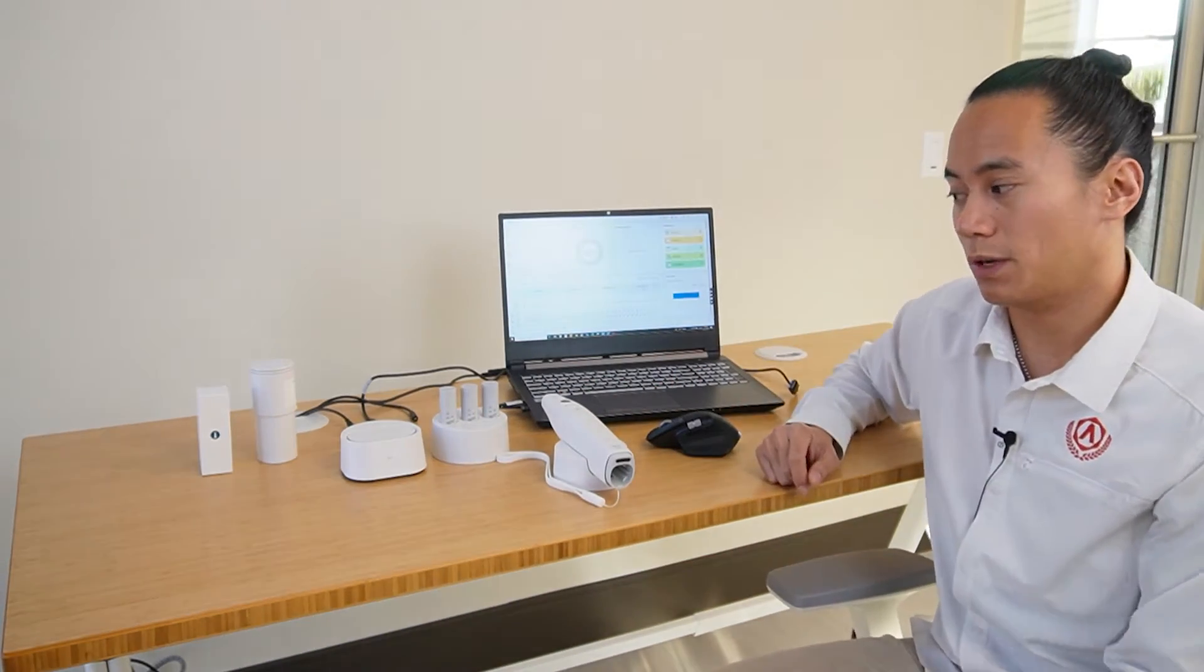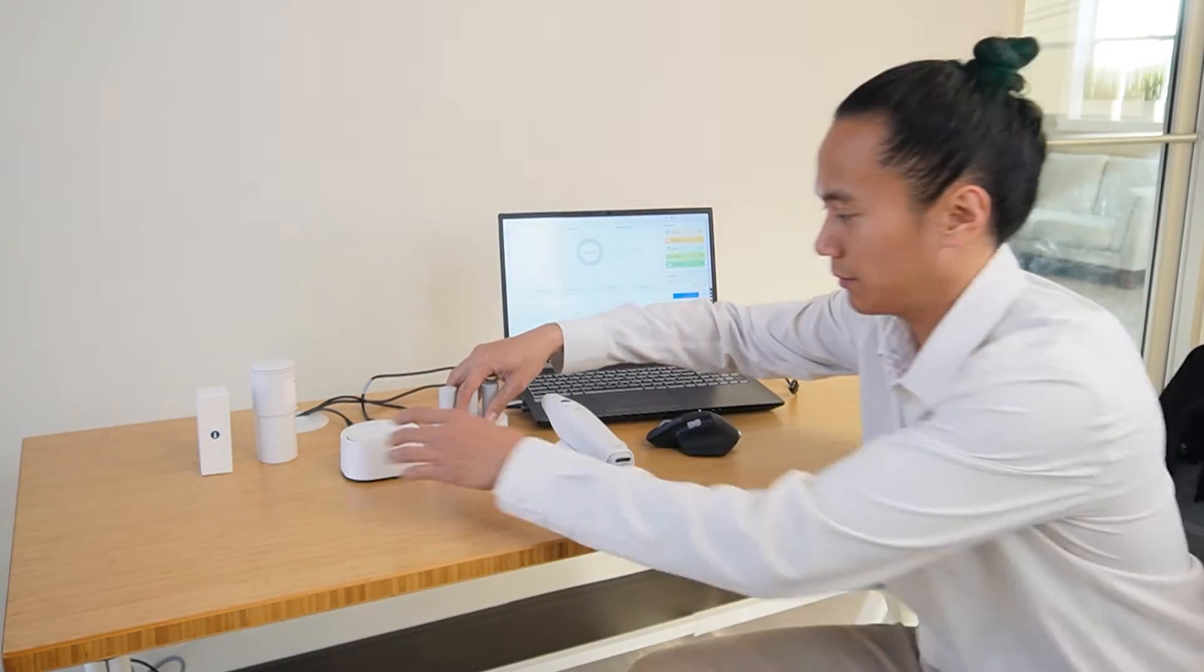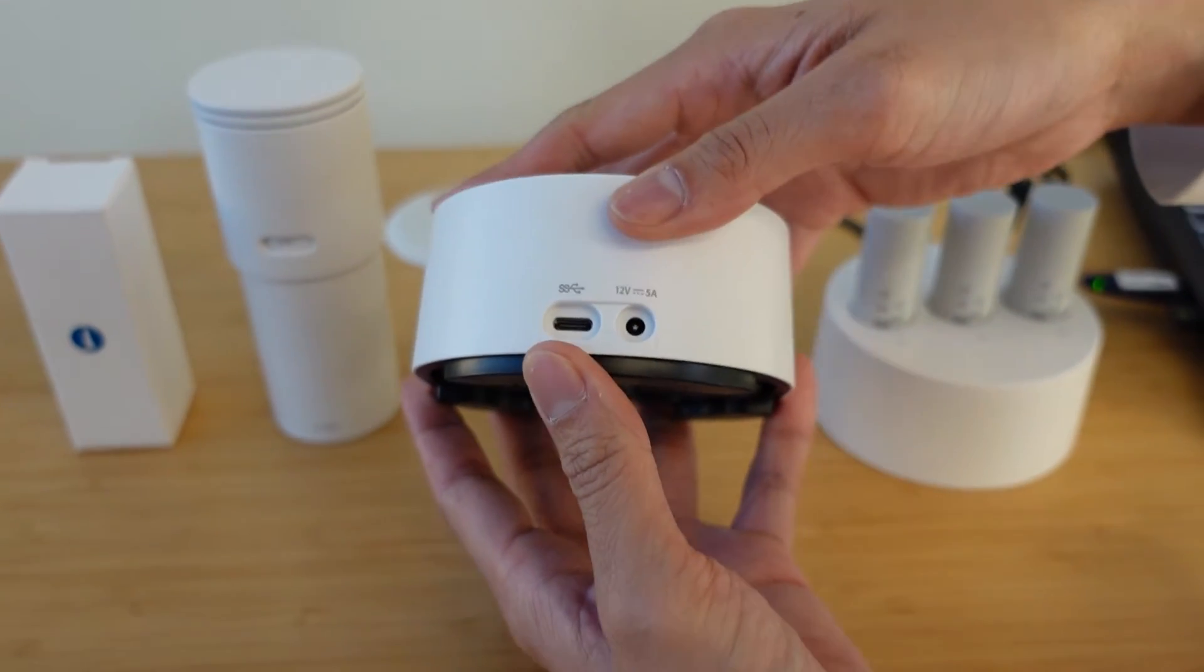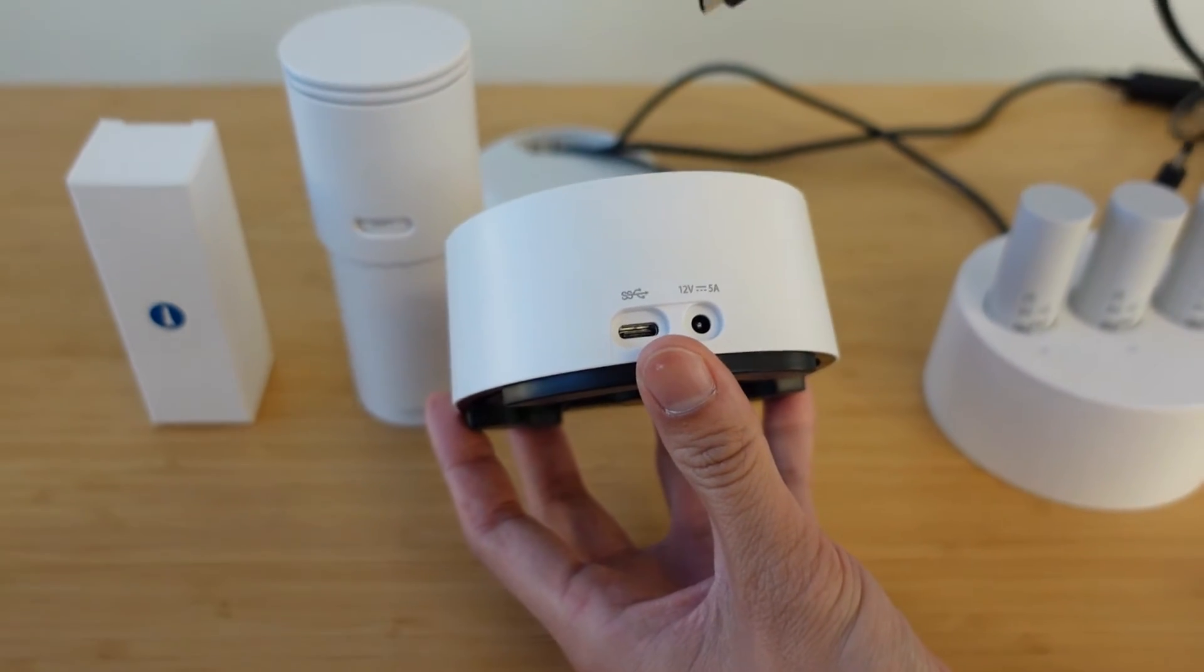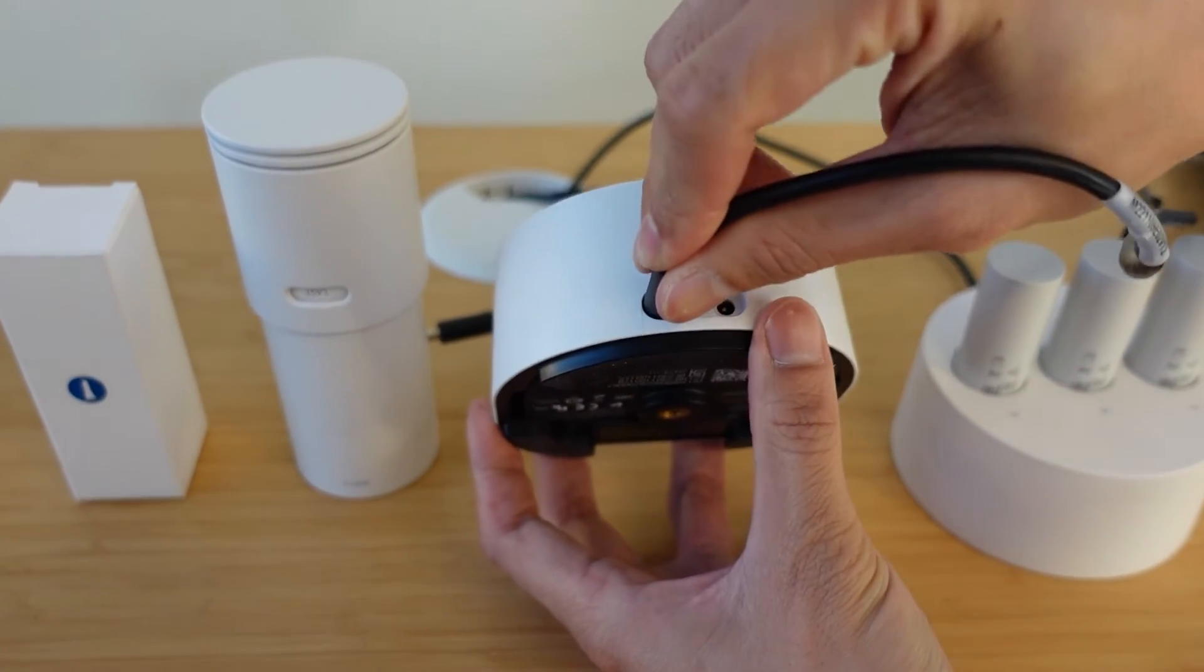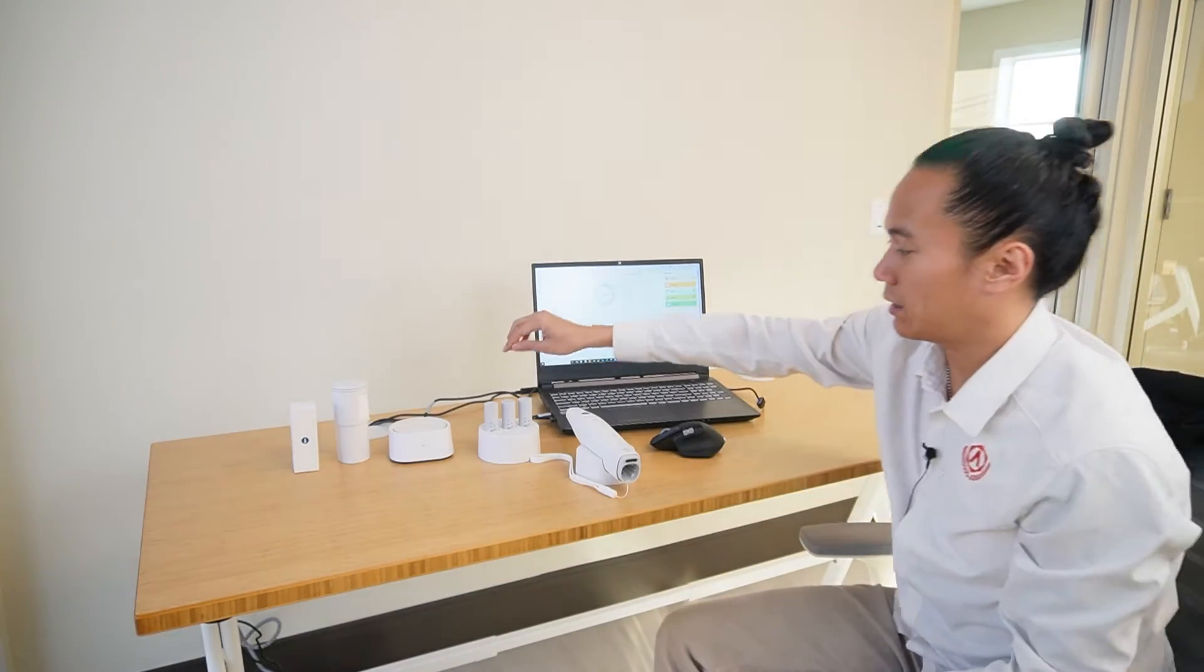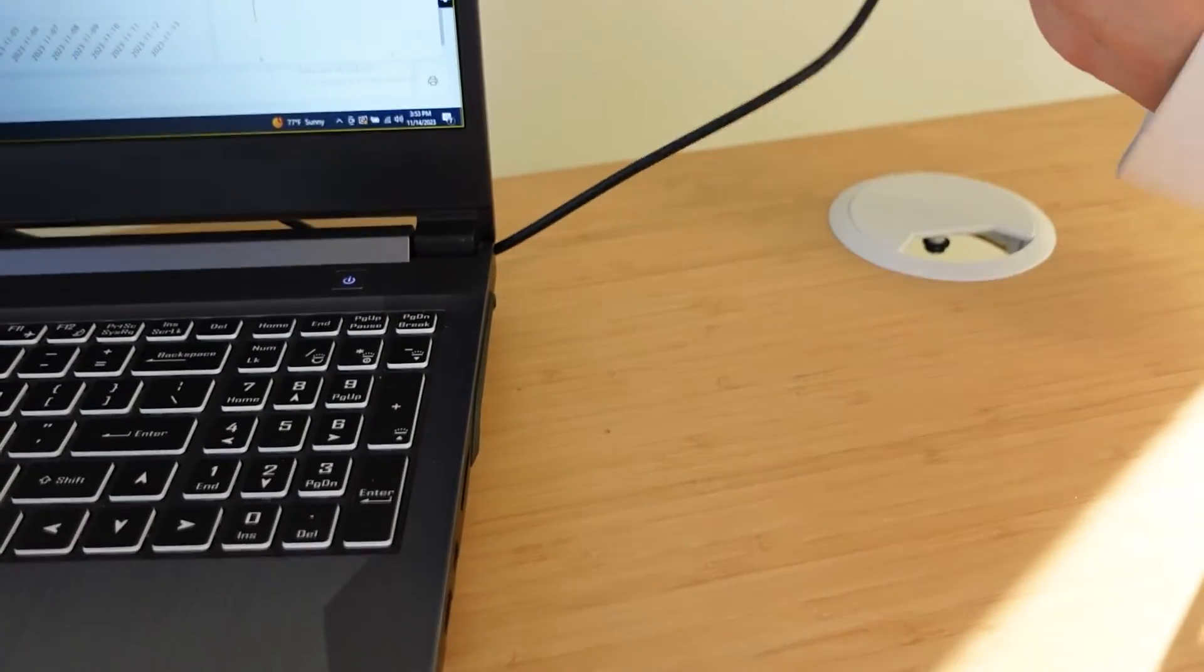The first thing we're going to do is plug in the wireless USB hub as well as the charging station. If you notice on the back of the wireless hub, you're going to notice two ports: your super speed USB port and your power outlet. The power outlet goes directly to the wall and your USB port will connect to your computer. When you plug in the USB port to your computer, you want to make sure that you also plug into a super speed 3.0 port.